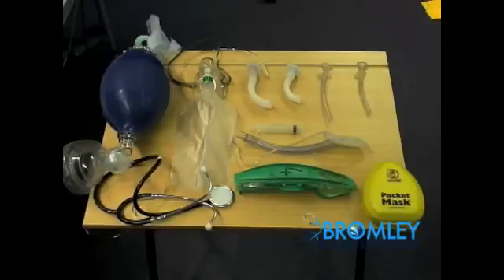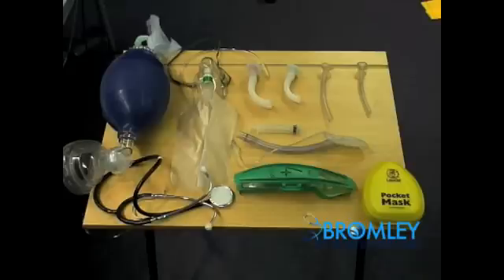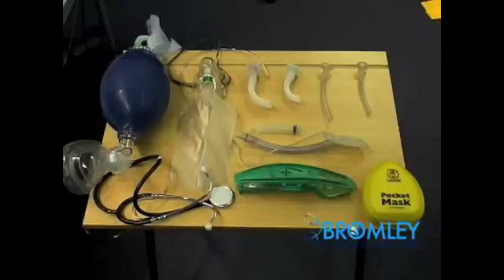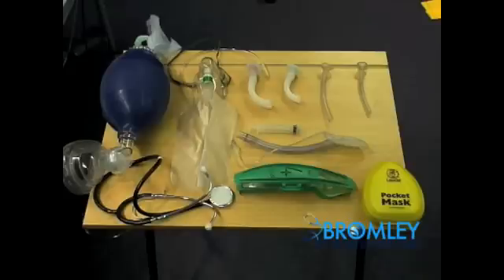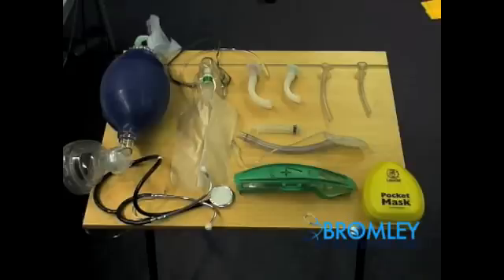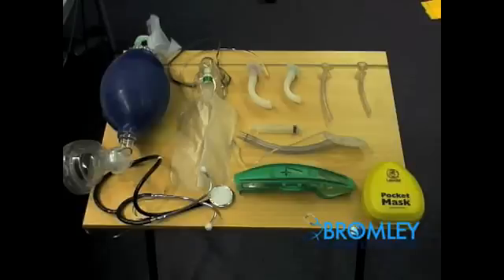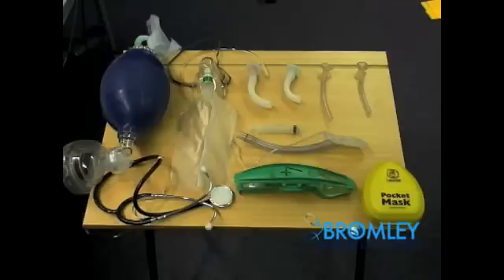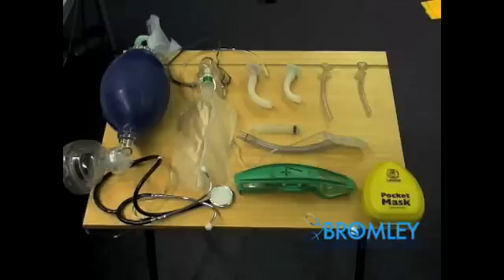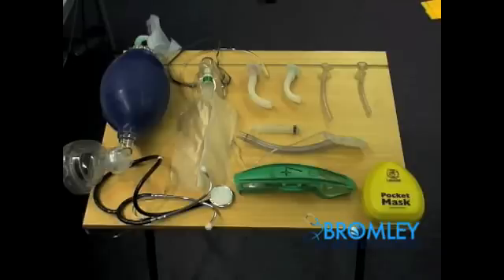It is essential to remember that when faced with a table full of multiple pieces of airway equipment, not to feel pressurised to have to talk through all this equipment. It is often far more appropriate to ascertain the student's level of knowledge and then to pick an appropriate topic from there.